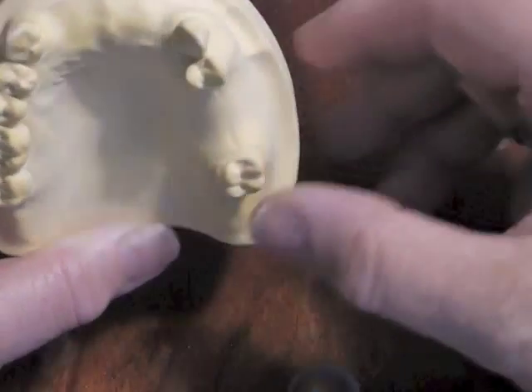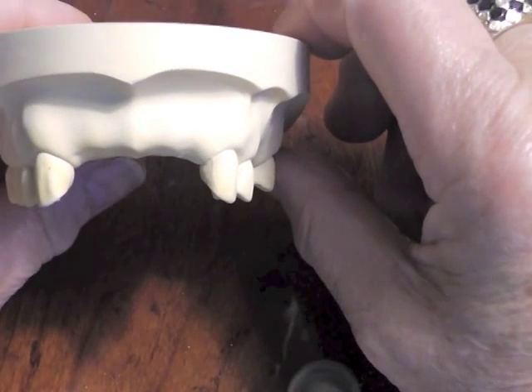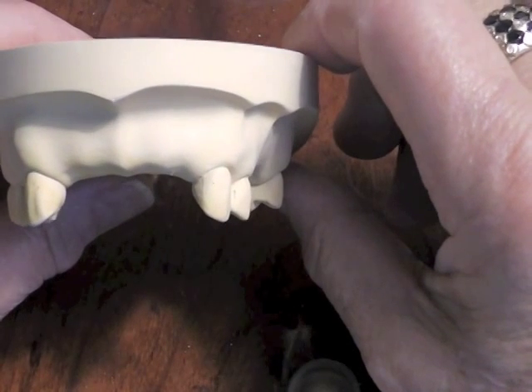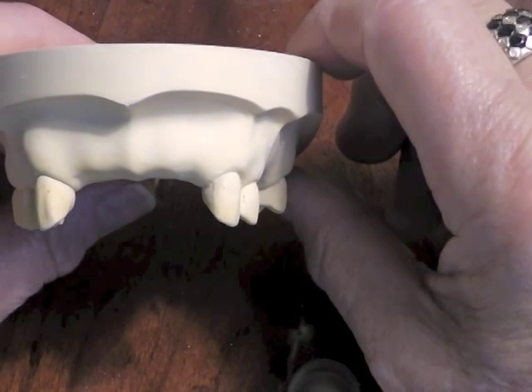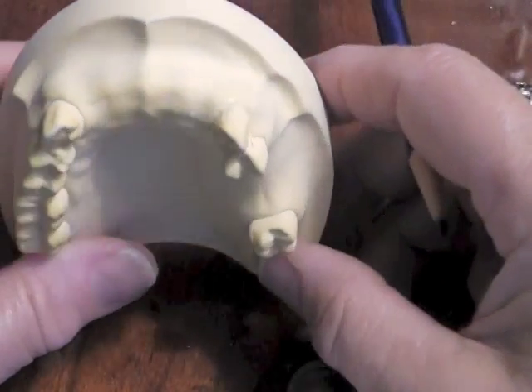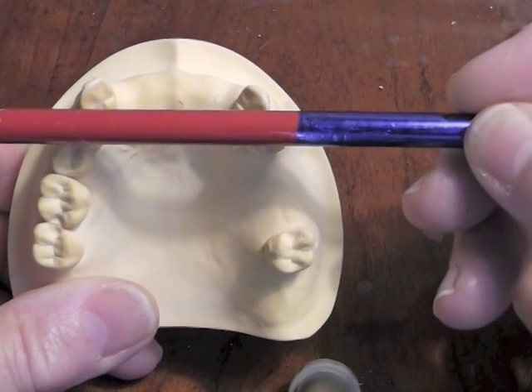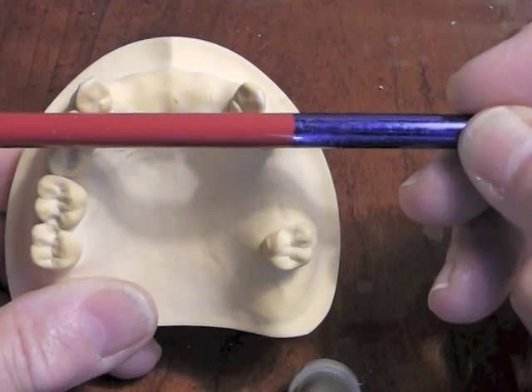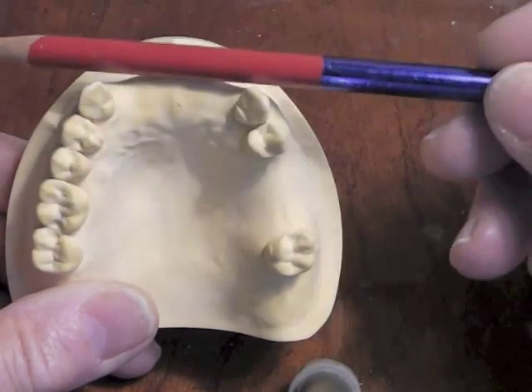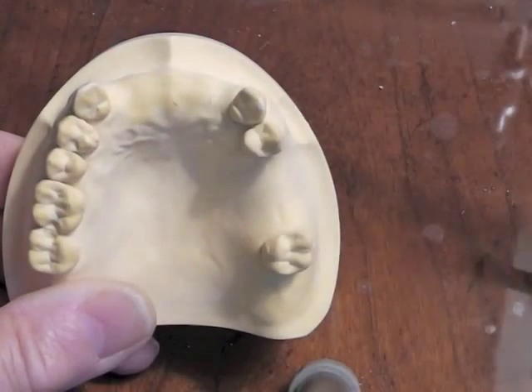Aesthetically, canines are pretty obvious in the patient's arch when someone smiles. So we would like to avoid putting clasping assemblies on those canines for aesthetic reasons. We would think about moving back to our first premolars, which would be a little bit more aesthetic, and it would still take care of that action of trying to dislodge in the anterior area.